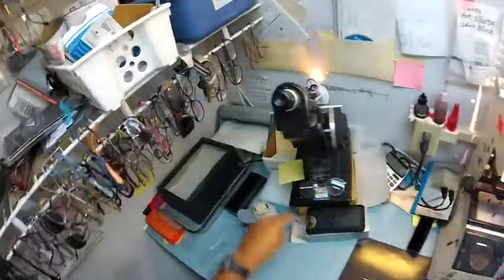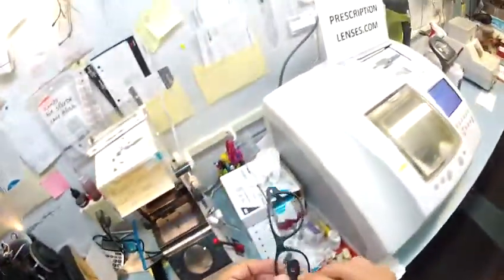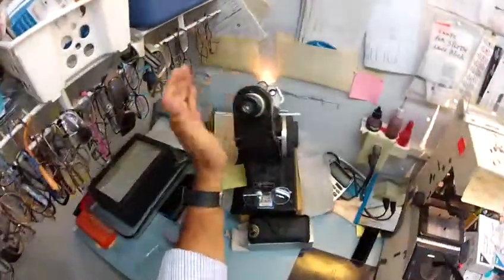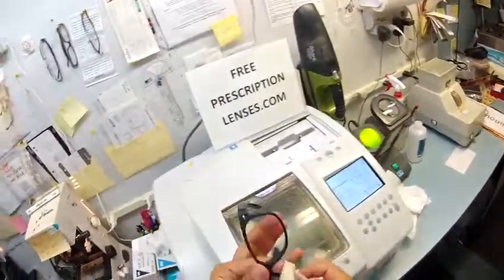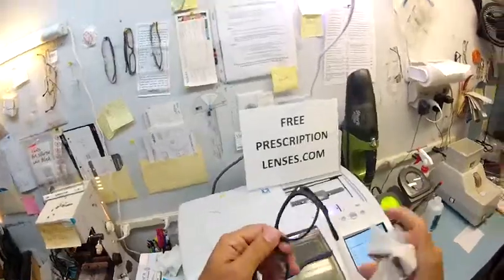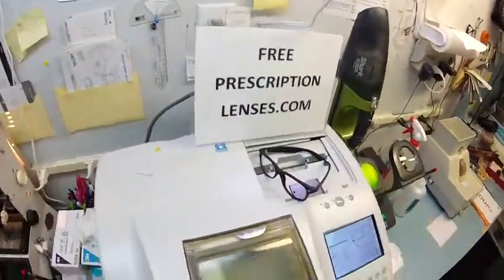Monti's is near there — that was my favorite restaurant in London. So pull that sticker off. And of course there's no prescription to have to read in my Marko 101 lensometer — these are non-prescription. They will be clear indoors and then turn dark when you go outside. I will demonstrate that as soon as both lenses are in your frame.